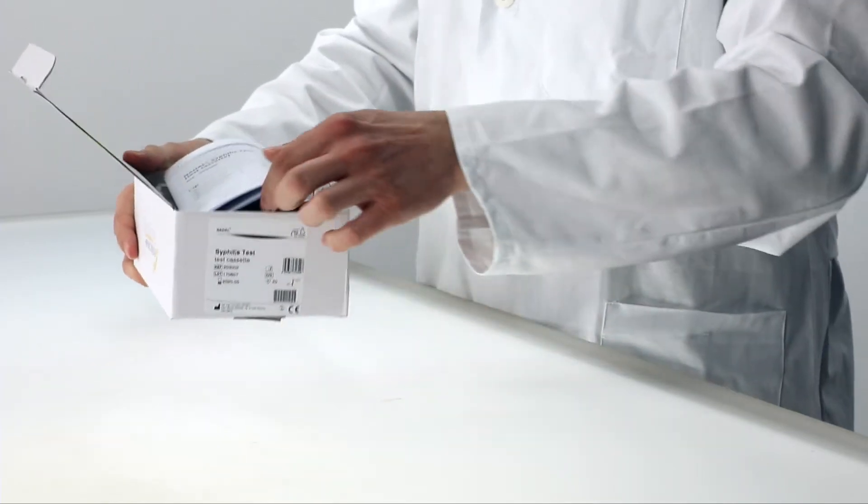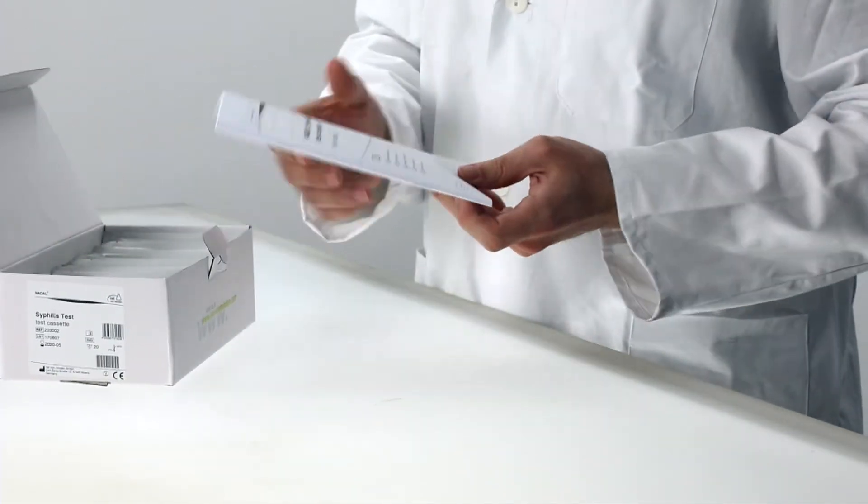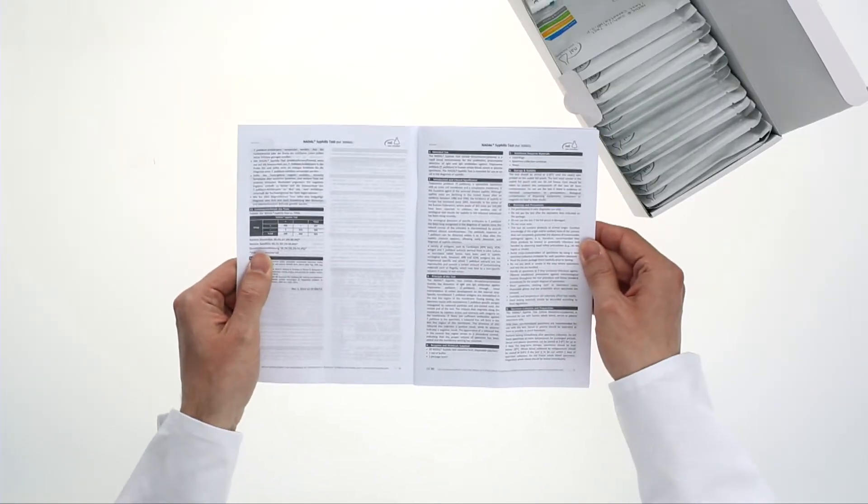All Nadal rapid tests are based on a similar test principle. Always start by reading the instructions carefully.